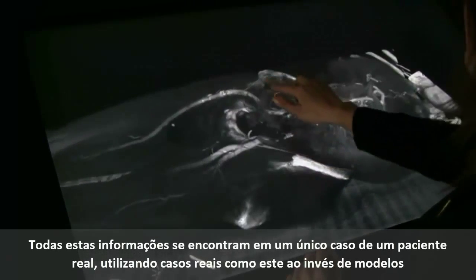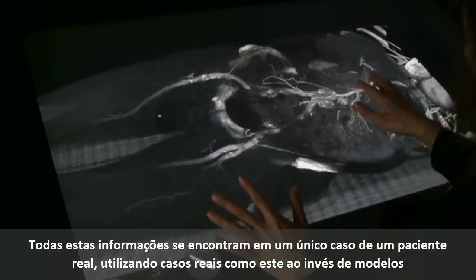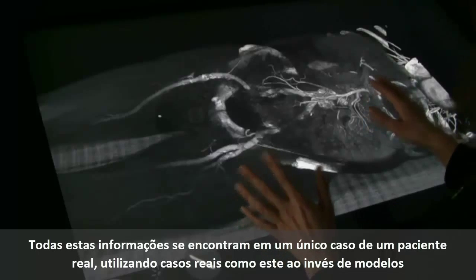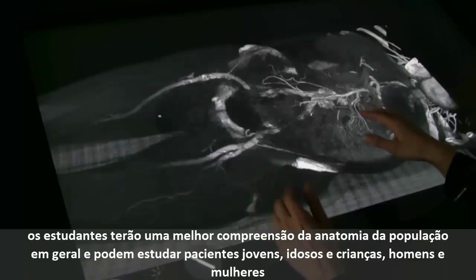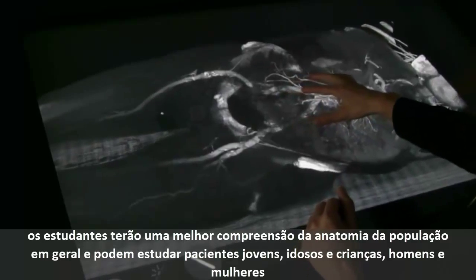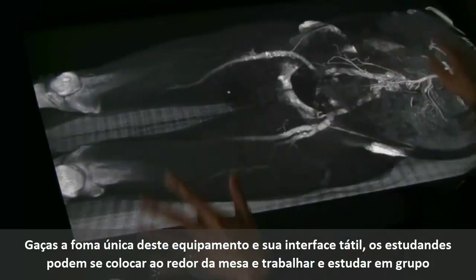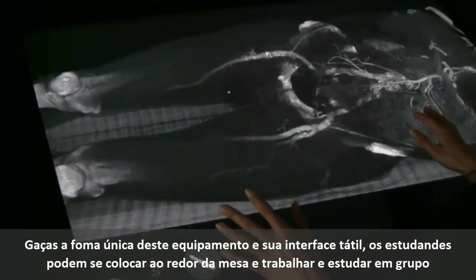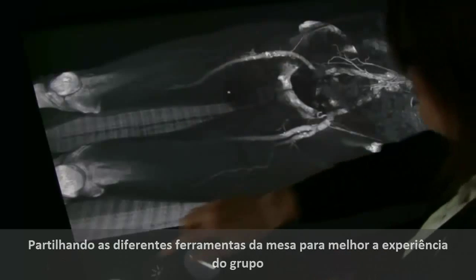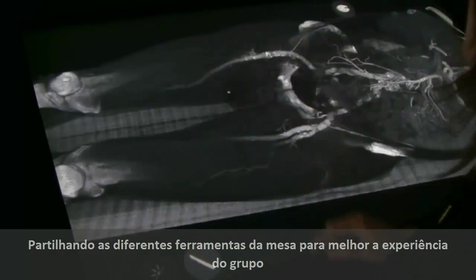All this information is gathered in one real-life patient case. And if you're using real-life patients like this instead of models, the students will get a deeper understanding of the anatomy of the normal population, because you can study young and old, female and male. And thanks to the unique format and the touch interface, the students can gather around the visualization table for group discussions. You can easily hand over the commands to even further enhance the group discussions.